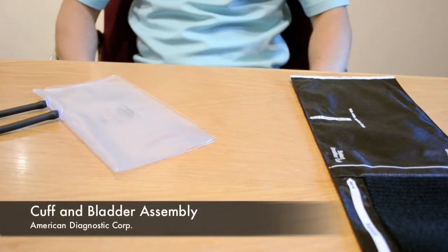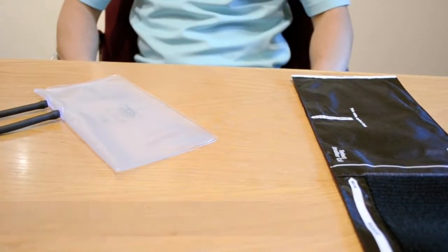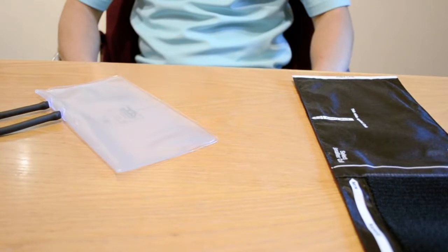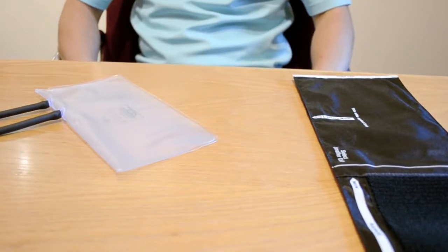Hello, welcome to ADC's series of instructional videos. In this segment, we will discuss the process of inserting a convertible bladder into a blood pressure cuff.